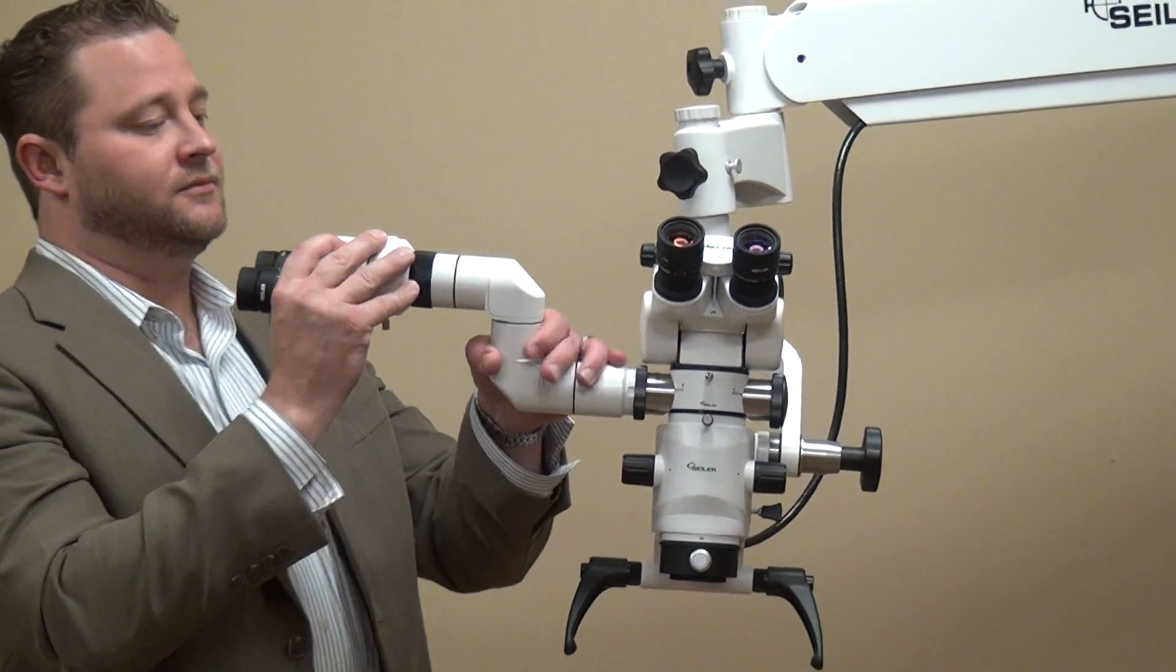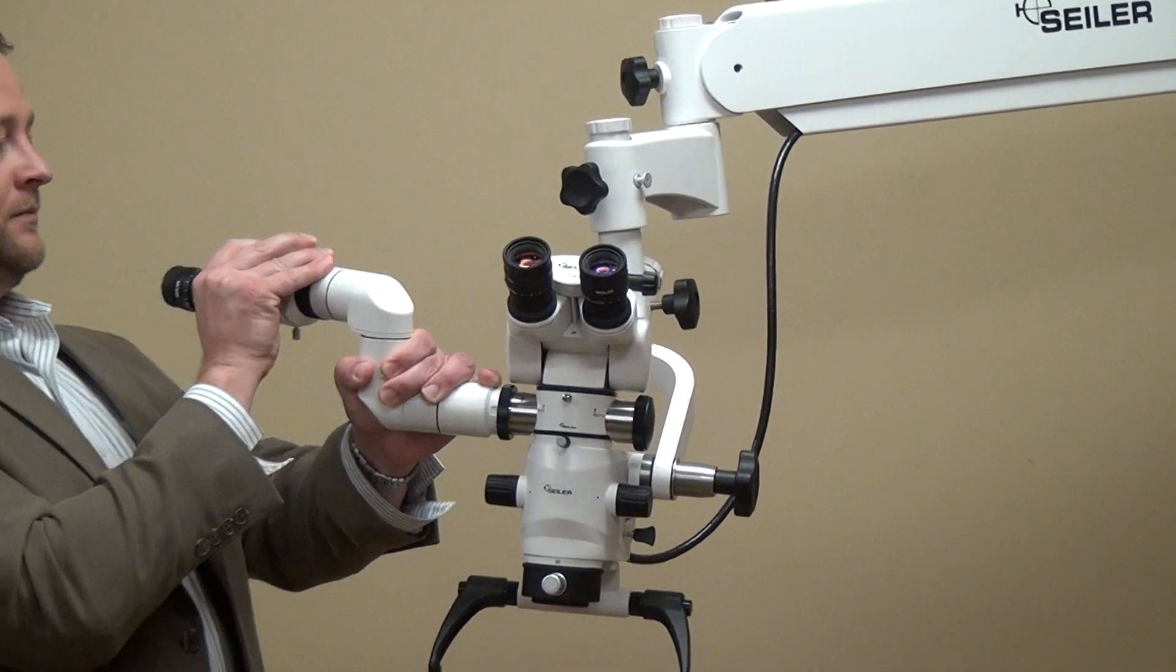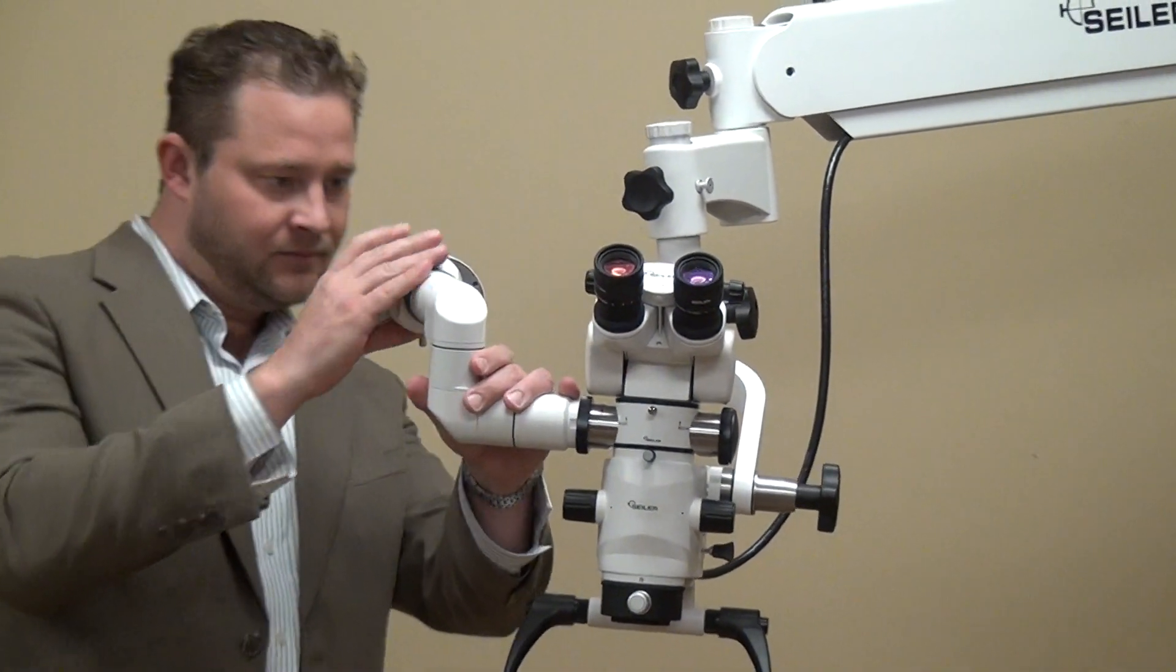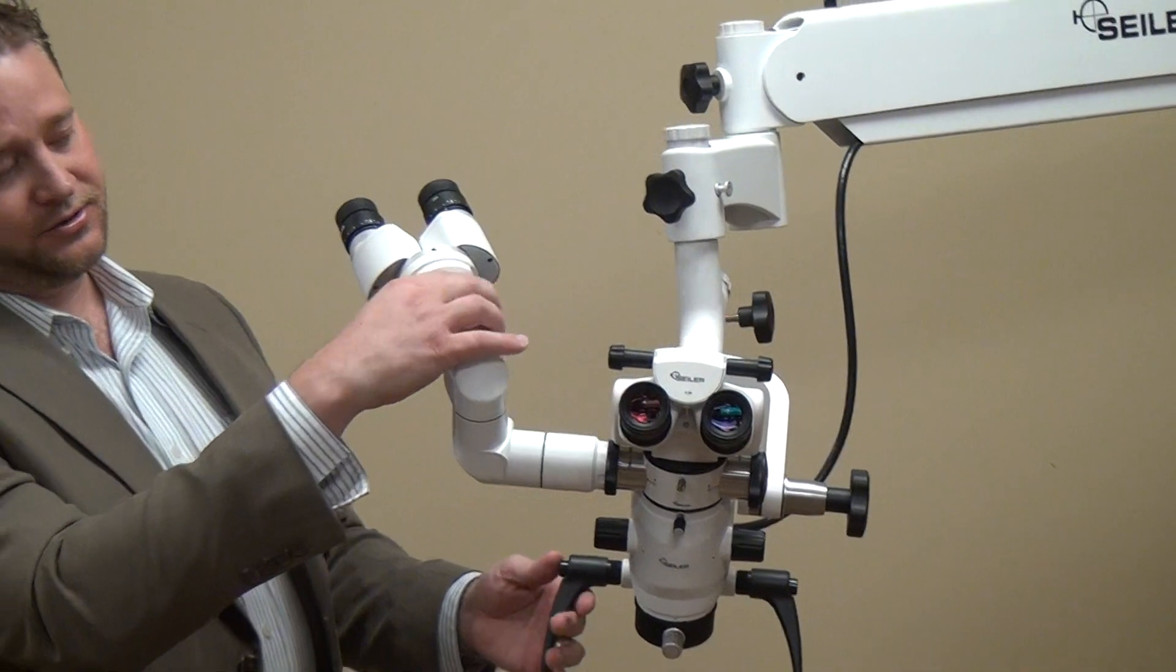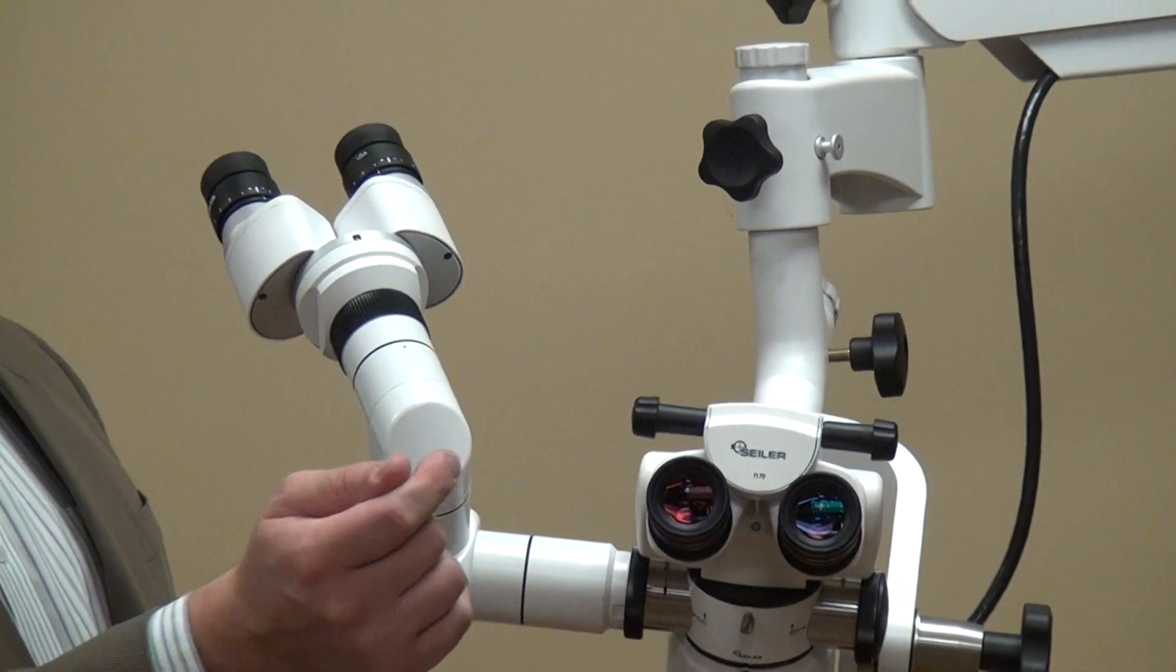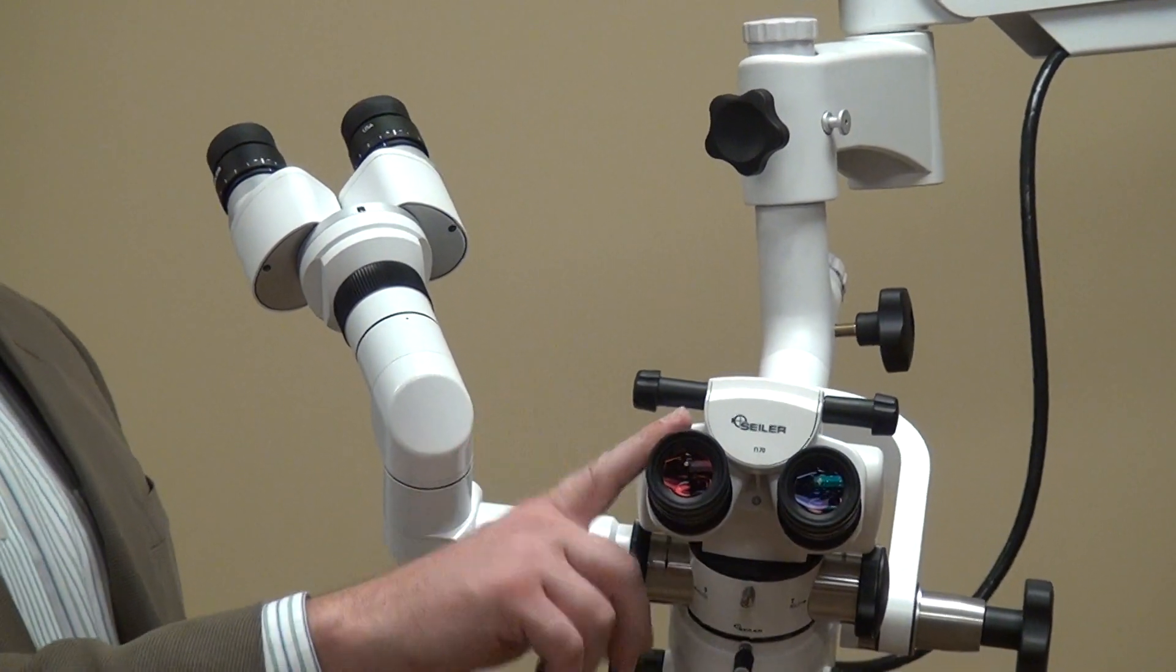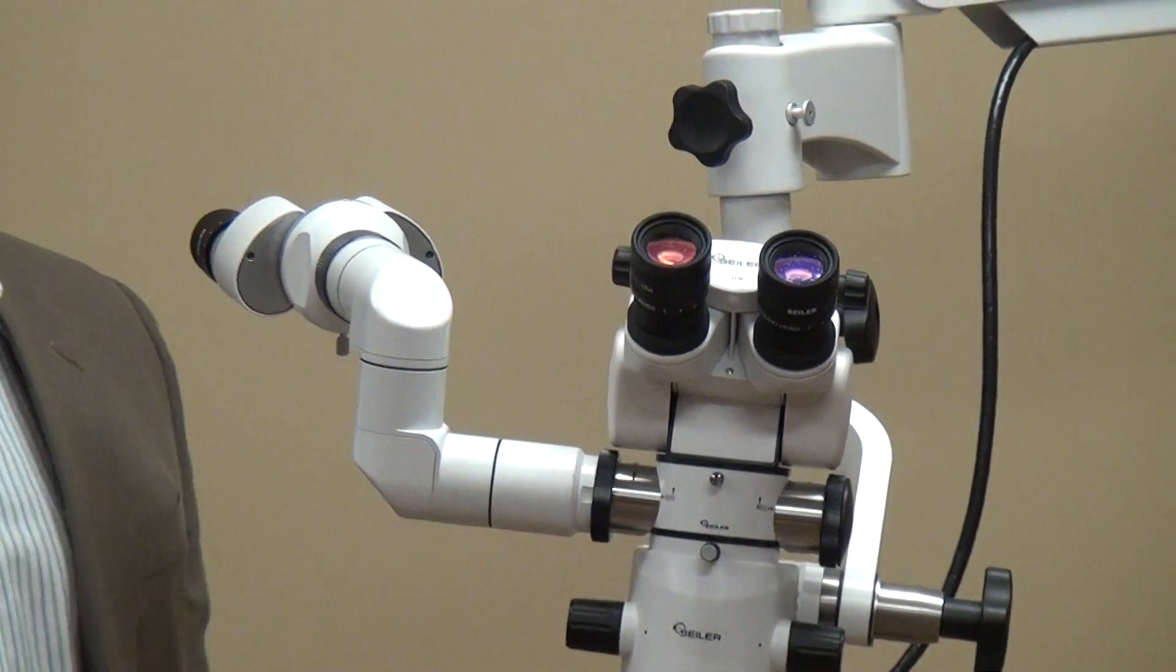One thing I want to show you, you can rotate it here. And also one other thing, this little black circle will actually rotate the image so you can see exactly what the head surgeon is seeing as well. Thank you.